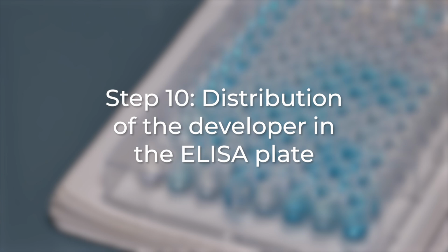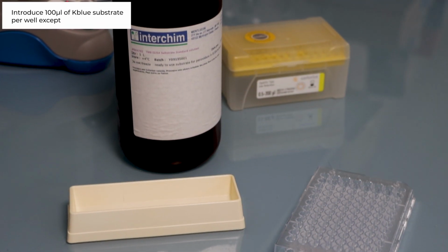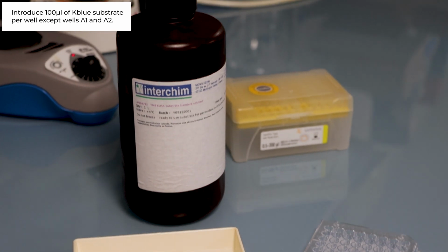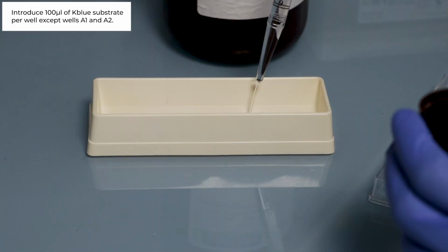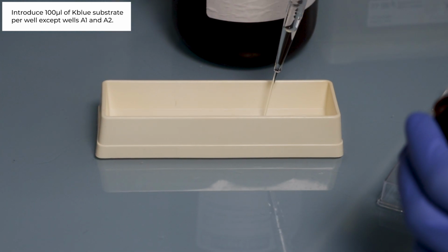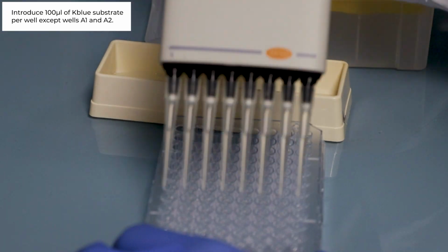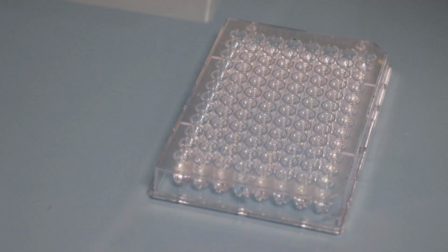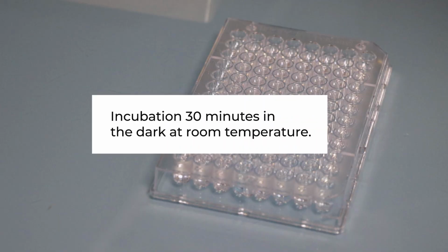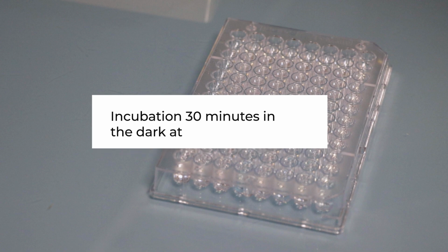Step number 10. Distribution of substrate chromogen in the ELISA plate. Introduce 100 microliters of K-blue substrate per well at the exception of wells A1 and A2. Incubate 30 minutes in a dark place at room temperature.